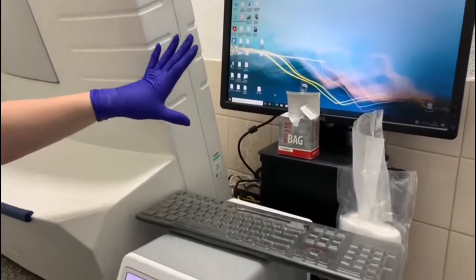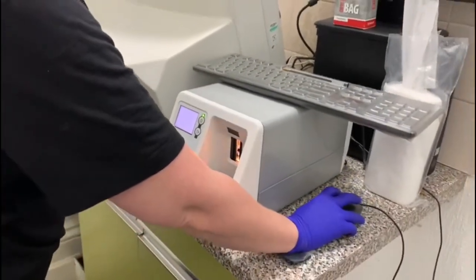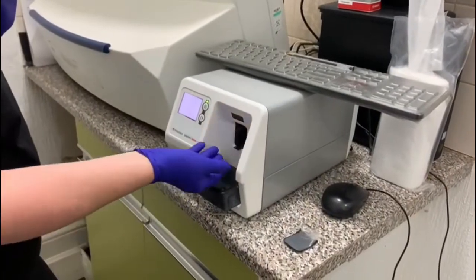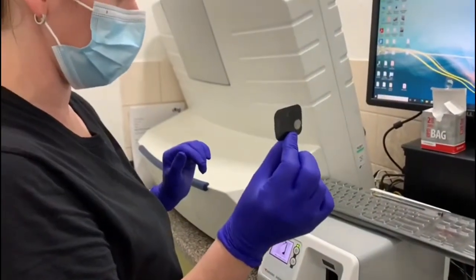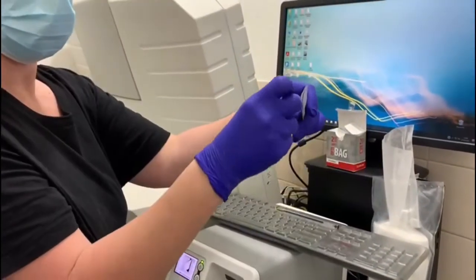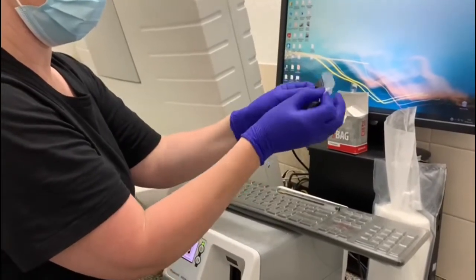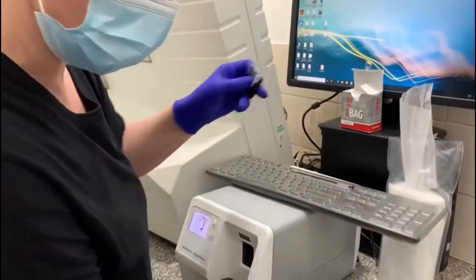This is not taken on an actual patient, so you're not going to see the image. Here's your x-ray film — that's ready now to use on another patient. Before I go back to the surgery, I would get a clear pouch, put that in, seal it, and that's ready to be used again. The packaging is now clinical waste.